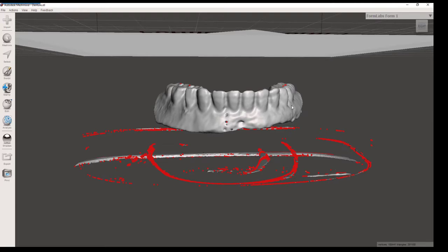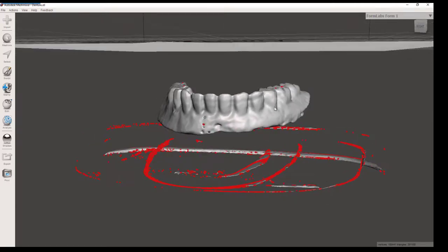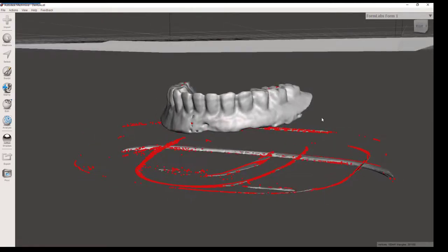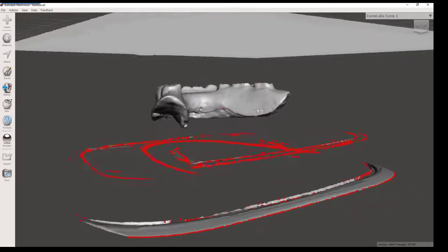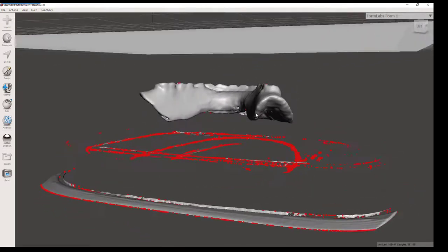Here you can see the Vatech STL file that has been opened in the third-party software MeshMixer.